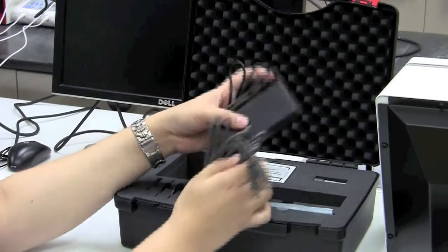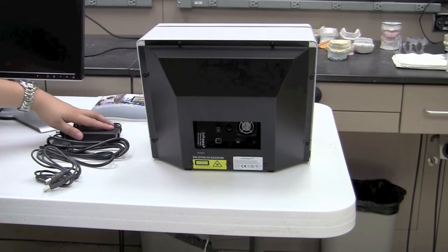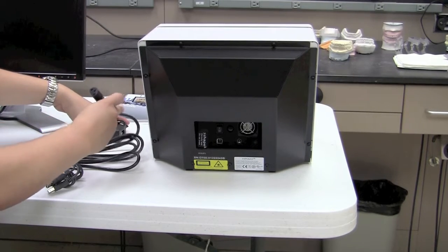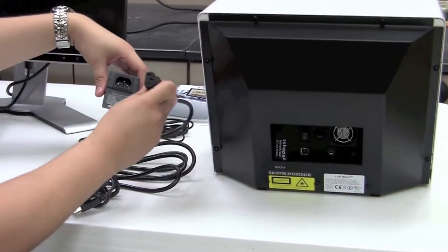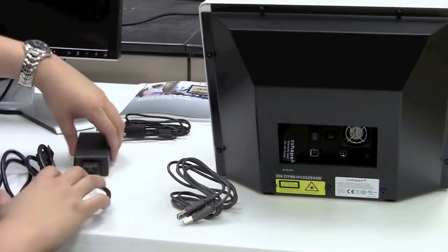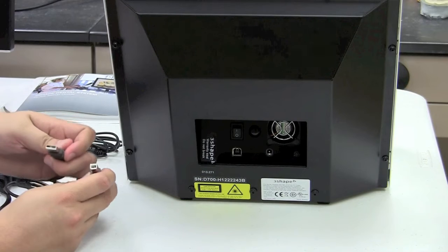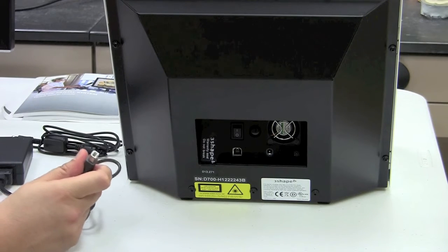The power brick also has a cable attached to it. We'll set the USB data cable and power brick separate from the kit and set the kit aside. We have three cables to use — two are power cables and one is the data cable going from the scanner to the computer. We'll start by using the power cable that came in the corner of the crate with the scanner, and the power brick from the calibration kit — just plug the female-ended connector into the end of that power brick. Then plug one end of the power connection into the back of the scanner, and also plug in the USB cable. On the USB cable, there are two different ends: a standard USB end on the left that goes into the computer tower.